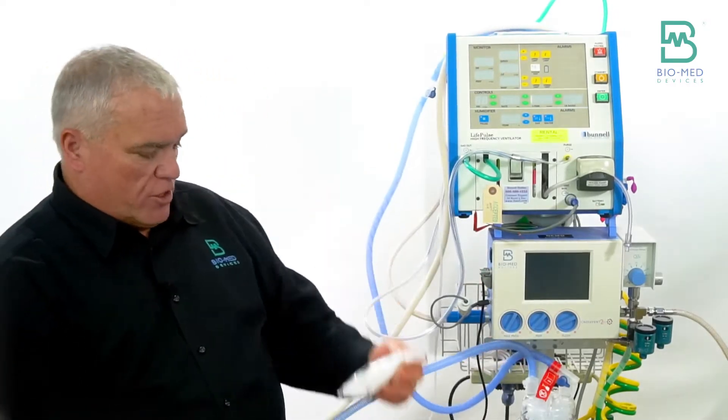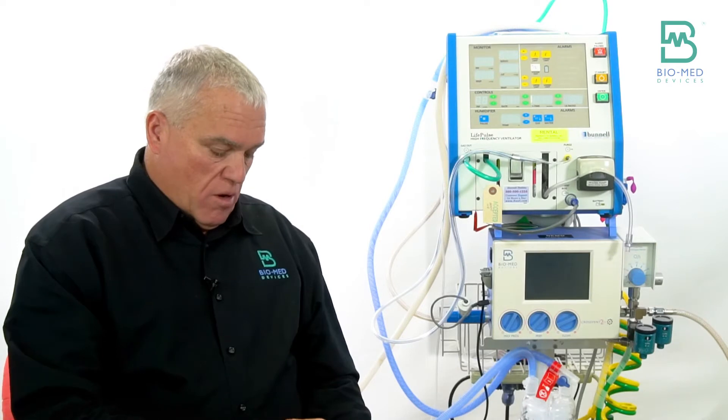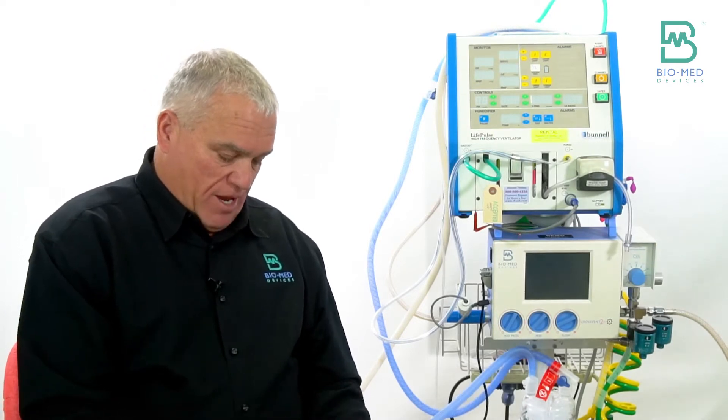This is the Fischer & Paykel circuit. There's a couple of these white fittings that come in the packet.